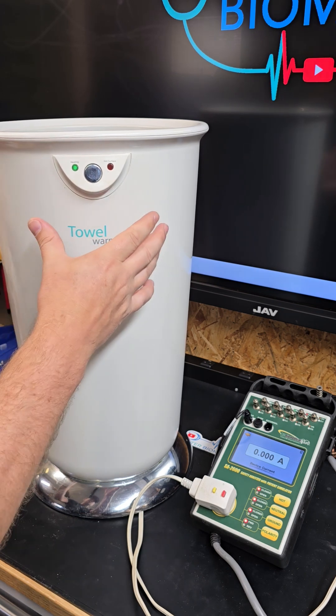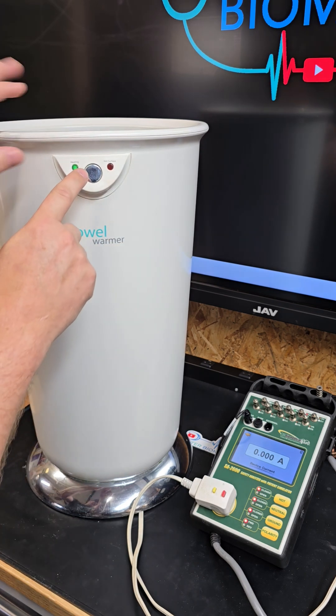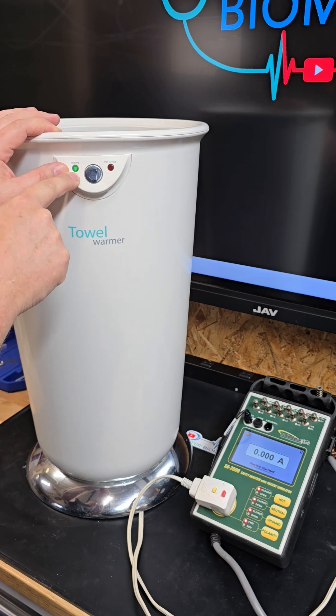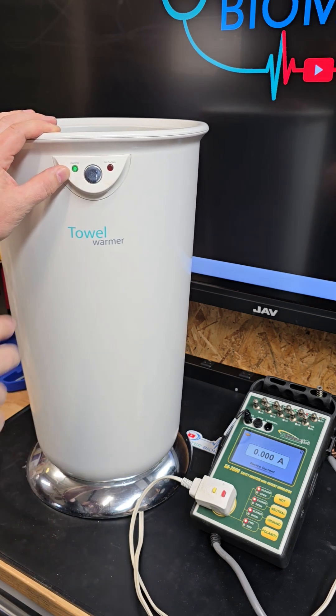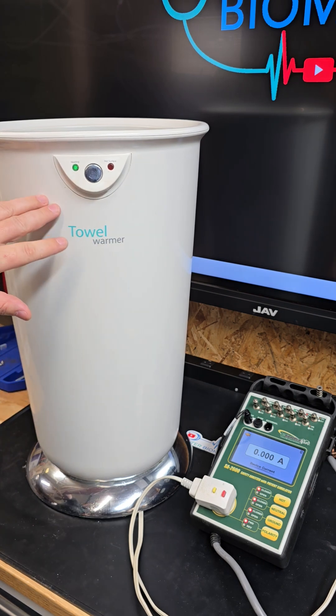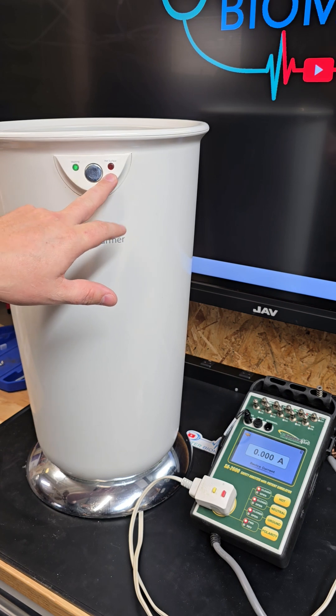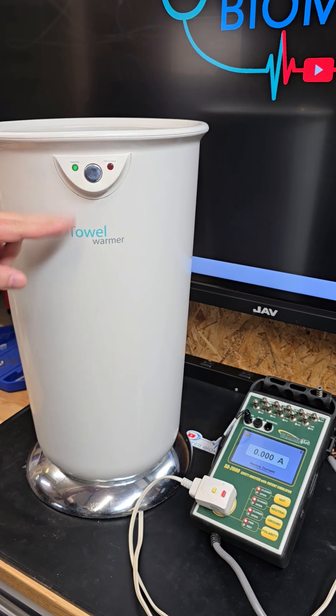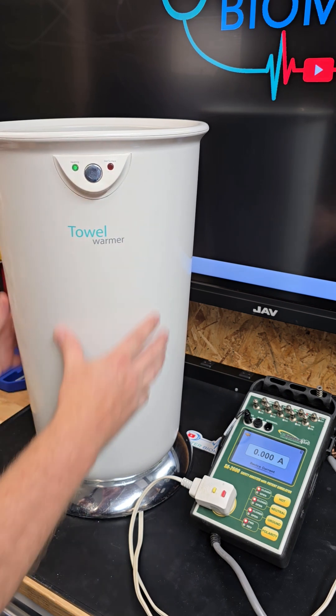I don't know if this little LED is in line with mains before those thermal fuses, but I'm assuming that little mechanical disconnector is probably part of the problem. We have a problem here in the heating element. I do have mains, and I've proven and detected that easily with my electrical safety meter.